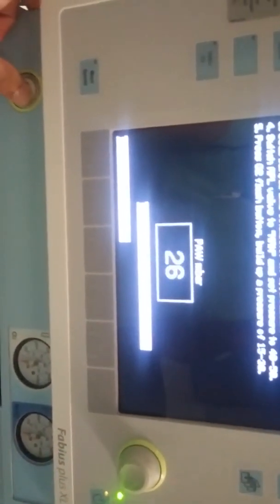Last step is press the oxygen flush to create the pressure about 15 to 30. If the pressure is below 15 and if pressure is above 30 we cannot perform the leak test. After fixing the mandatory pressure, automatically it starts checking.